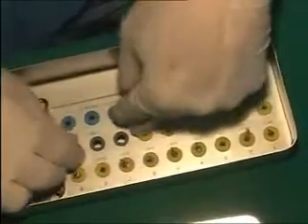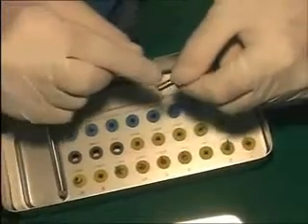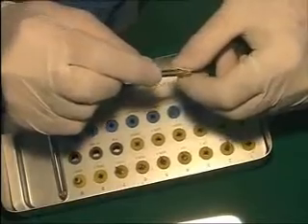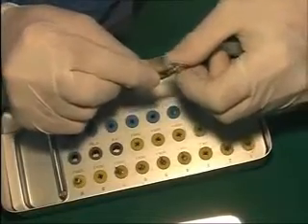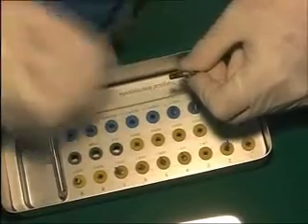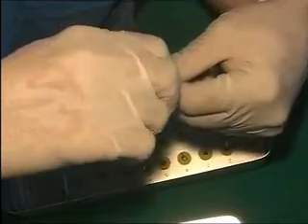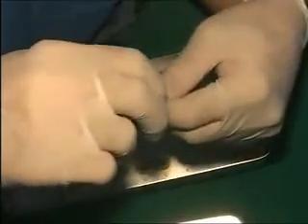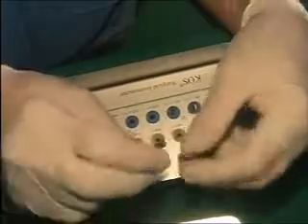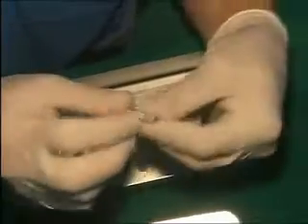Then in your kit are placement drivers. There will be two placement drivers: one for KOS and BCS implants, and another for the KOSK or the ball implant — you will see that tomorrow. There is a vertical slot on the side of the driver; in case it gets stuck in high-compression bone with the implant, once the placement driver has gone over the implant abutment, just put a scaler in the vertical slot and do the leverage — it comes out.